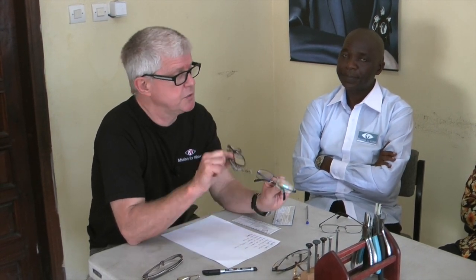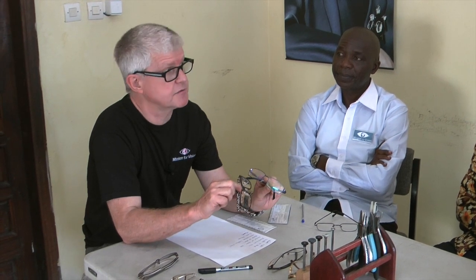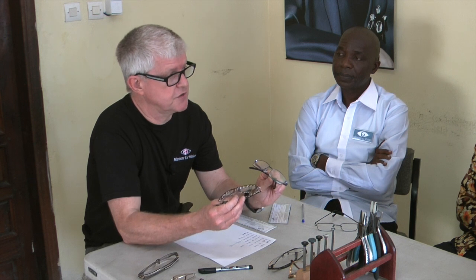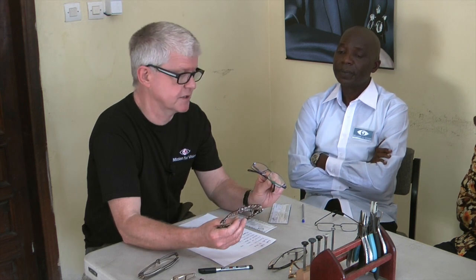Most people choose a frame for what it looks like, but we also need to be able to choose a frame that is actually comfortable to wear. Therefore it's good to choose frames that we can adjust correctly for that patient.